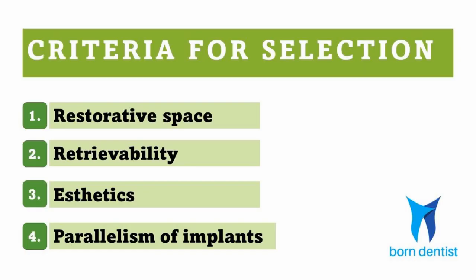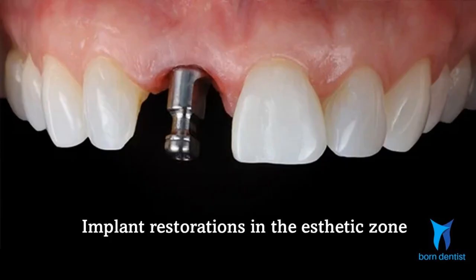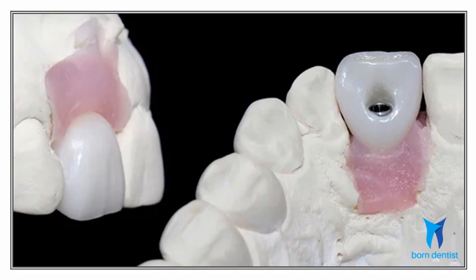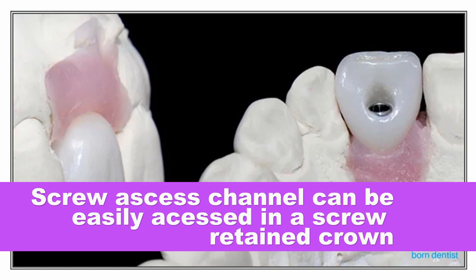The next factor is the ability of the prosthesis to be retrieved if it needs modification or refabrication. As the longevity of an implant restoration is greater compared to other forms of replacement, it often needs modification as its surroundings change. One such instance is when implants are placed in the aesthetic zone like upper incisors, where changes in soft tissue or adjacent tooth shape may prompt the patient to request modification. In such instances, an implant crown that can be easily retrieved is of great help. A screw retained crown can be easily retrieved as the screw access hole can be accessed easily, so a screw retained crown is preferred in the anterior region.